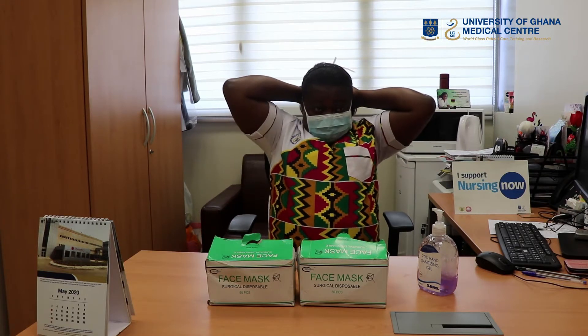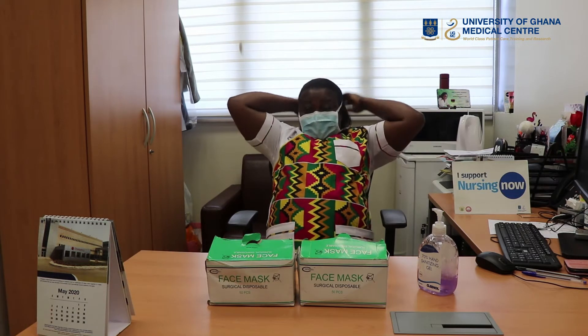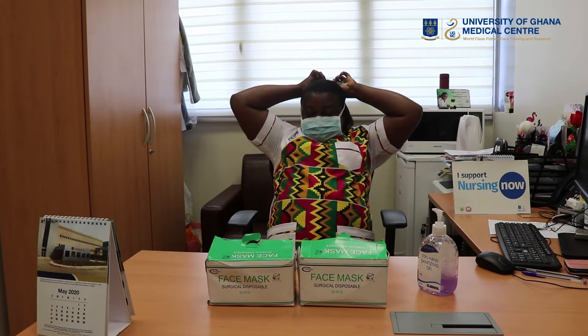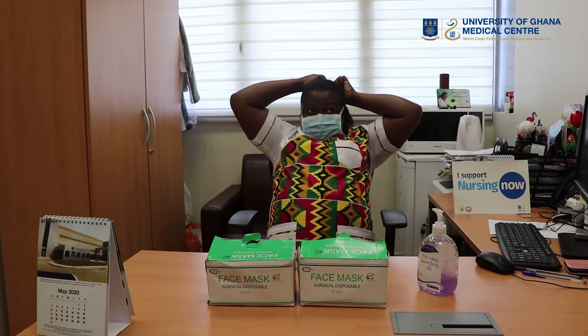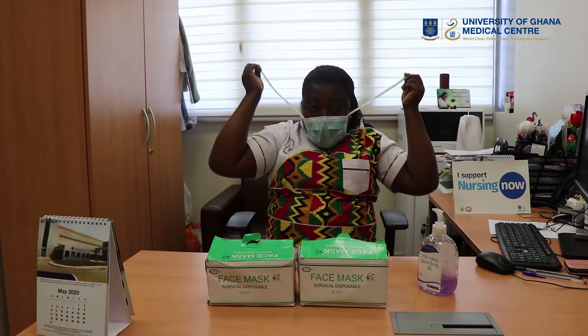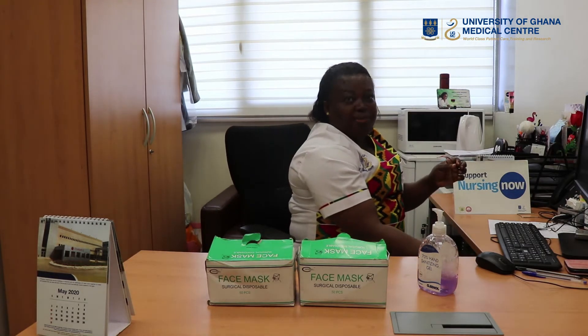So you release the bow tie. Then you hold the top one also and release. If you release it, don't drop it — just hold the strings together like this, and then drop it into the appropriate bin.